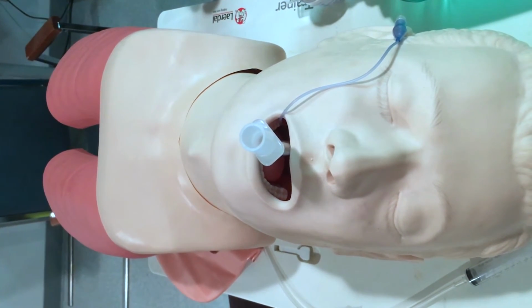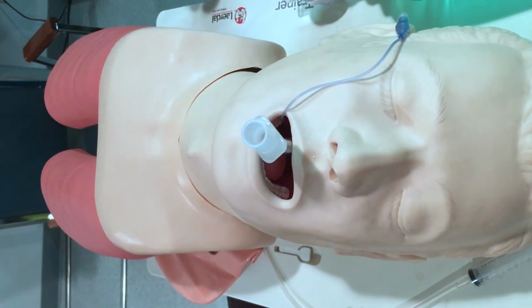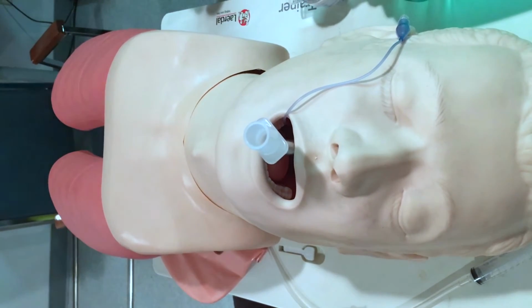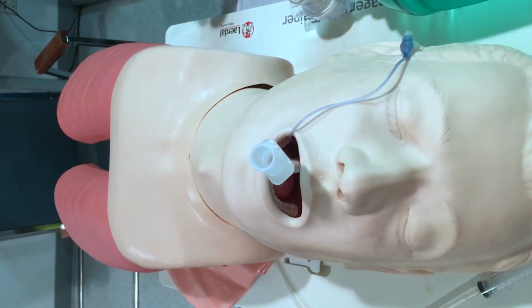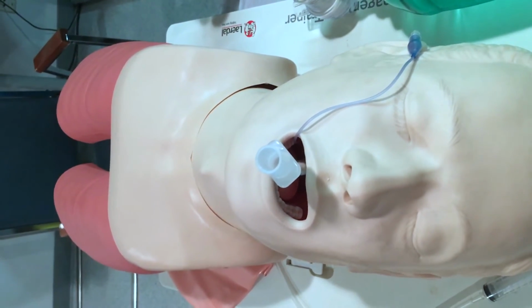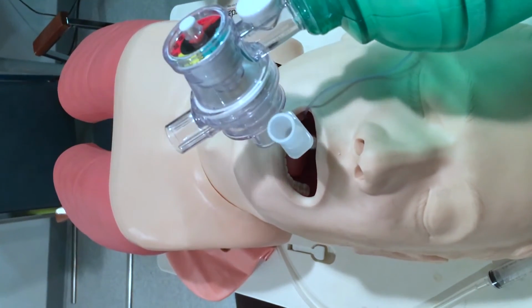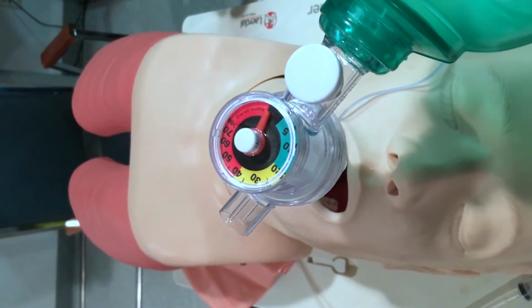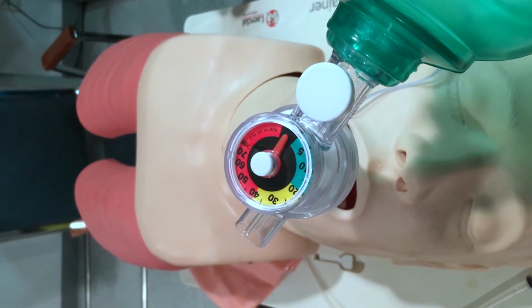So let's say you intubated the patient, you got overzealous, and you put the ET tube pretty deep. There are ways to identify endobronchial intubation, which is basically what this would be. This usually happens if you put the ET tube too deep. So let's say when you inflate and check, you have unequal breath sounds.